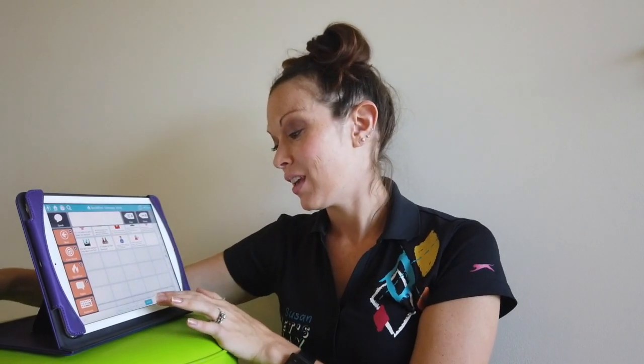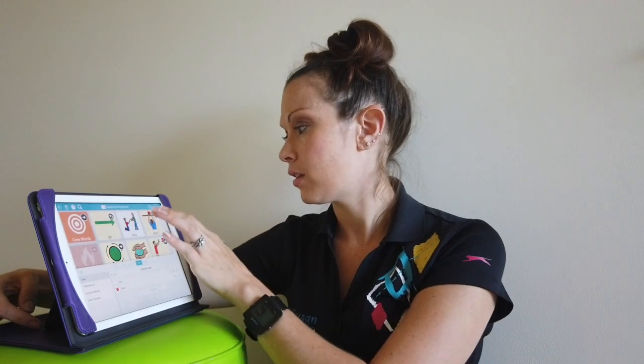I want to show you the layout I use with my children in therapy instead. So I'm going to switch it over to the one that I use with my children in therapy. I have it set up in a way that works well in my therapy room or in home environments, as it uses a core setup, but I keep it pretty limited, with only so many different core words.